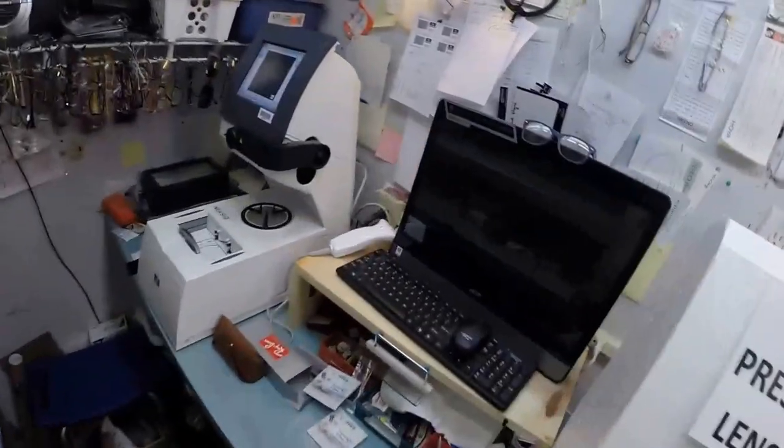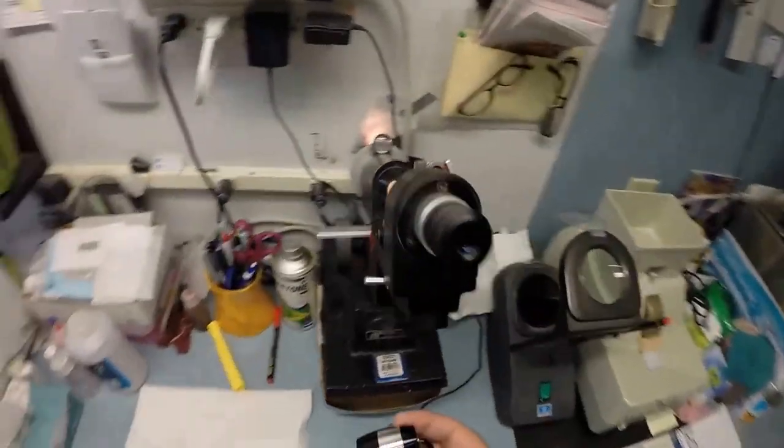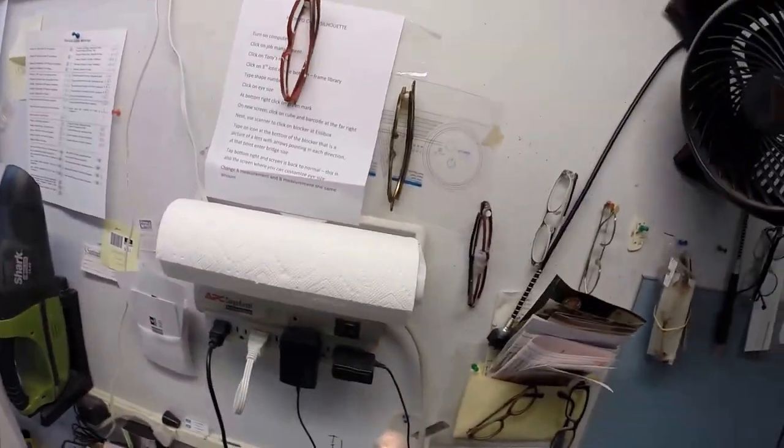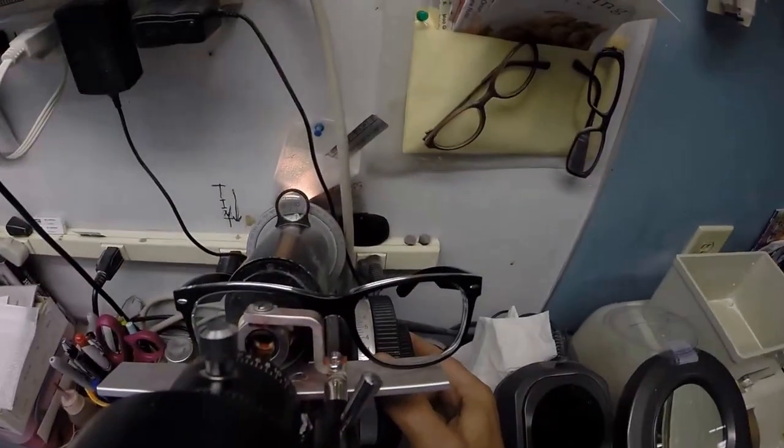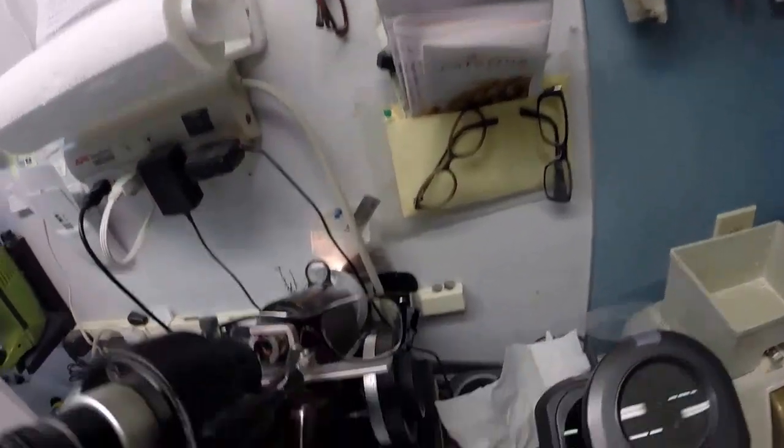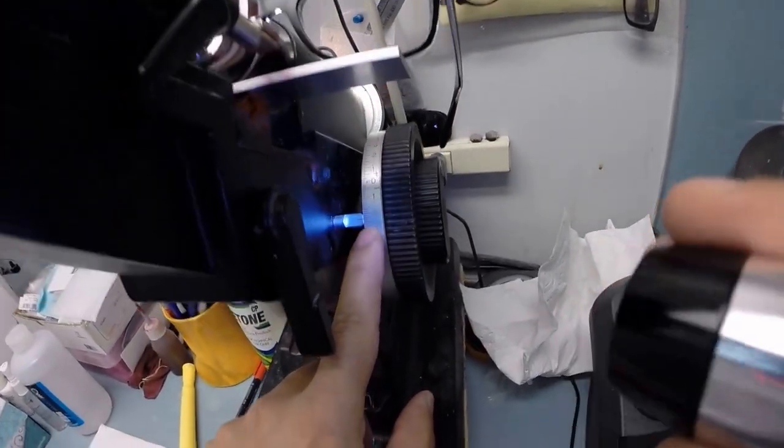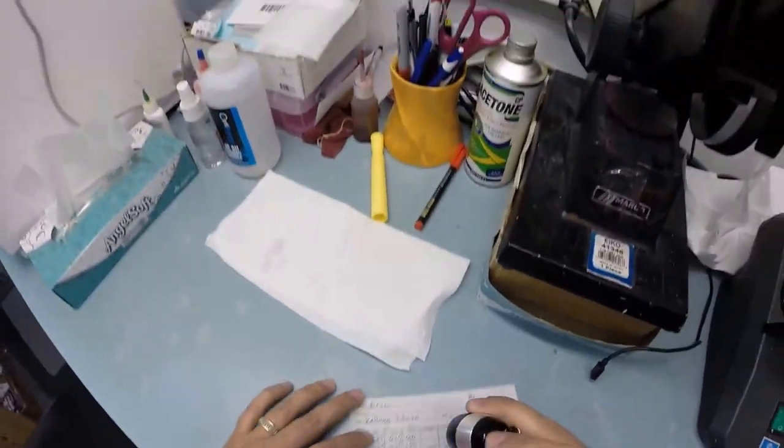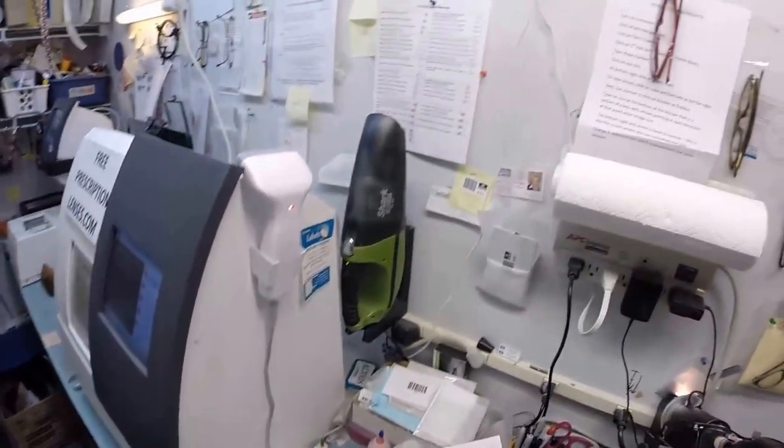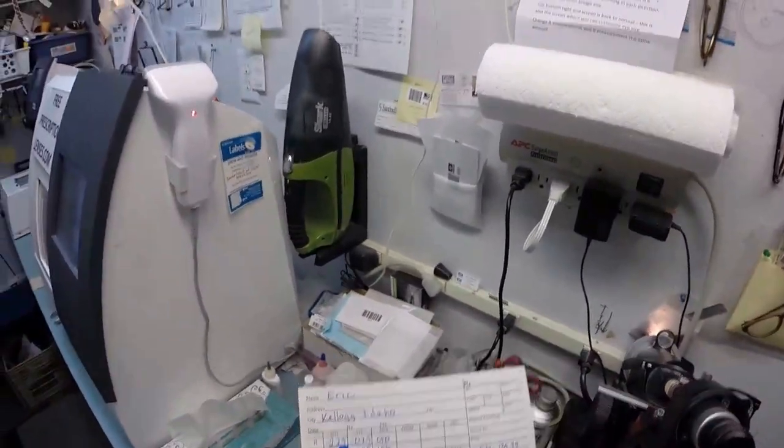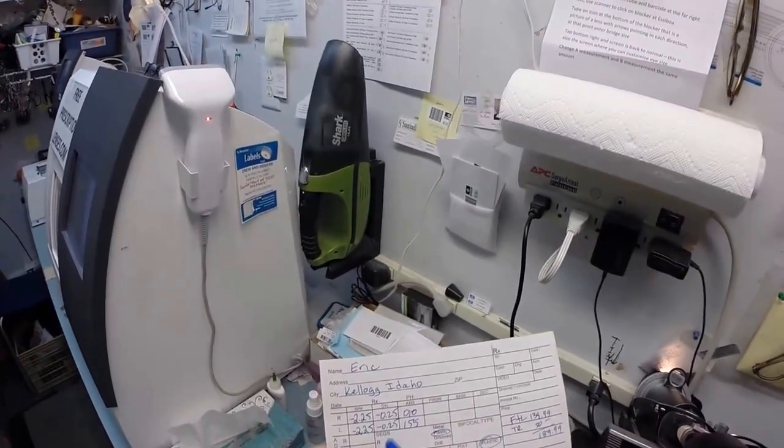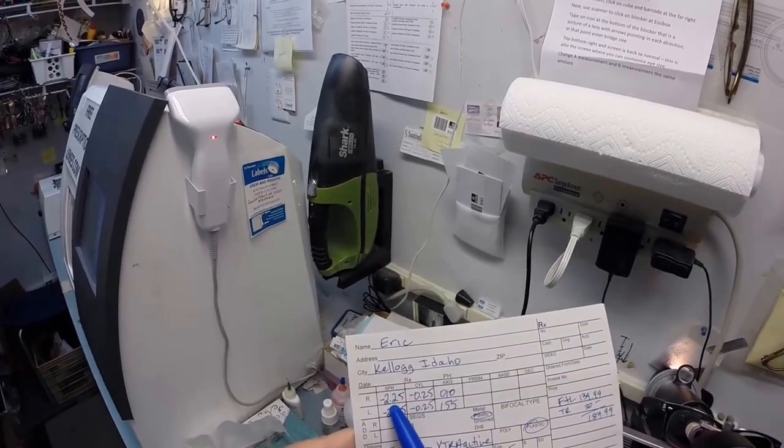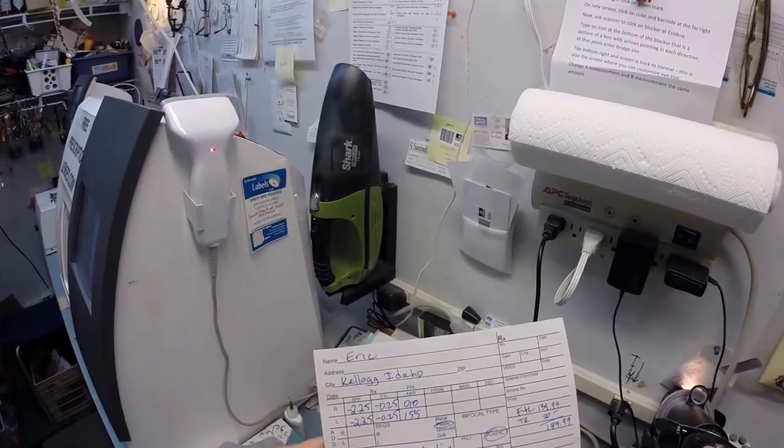I'm going to pop this block off - it is no longer needed. Pull that sticker off. Let's come back down here to the lensometer. Grab my flashlight. Spin the axis wheel back to 10, put your lens in, and I'm gonna read the power. I'm getting minus 2.25. We're at 2.25 - 2.50, 2.75, 3 - so we're one tick mark away from the 2. Your prescription, of course - the unit of measurement we use in the optical world is called a diopter, spelled D-I-O-P-T-E-R, starting at zero and going up in quarter increments: 0.25, 0.50, 0.75, 1.00 and so on.